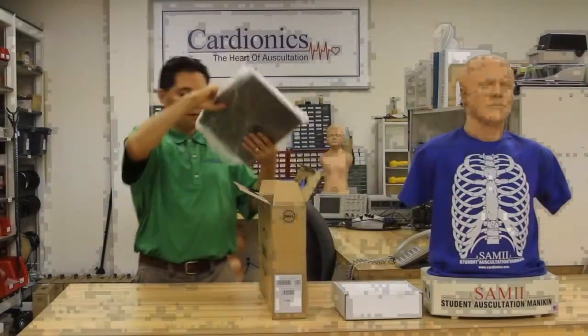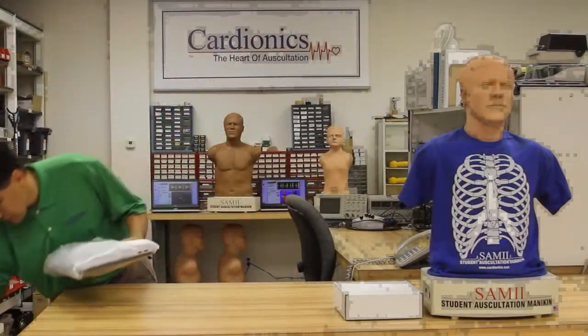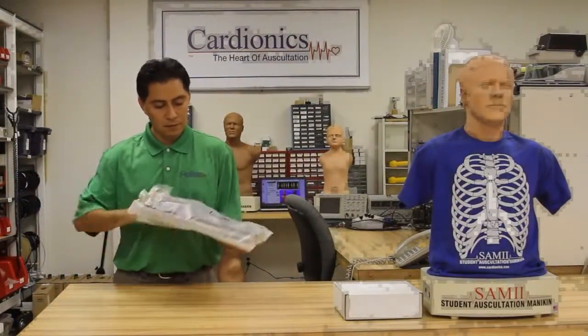Welcome to the SAM2 Setup Guide. By now you will have unpacked and verified that all components are present and in good condition.